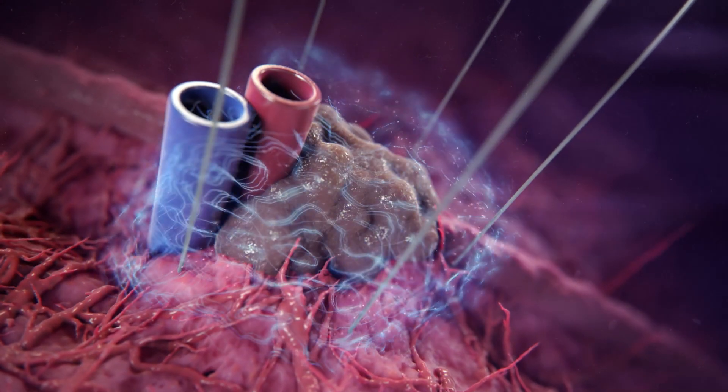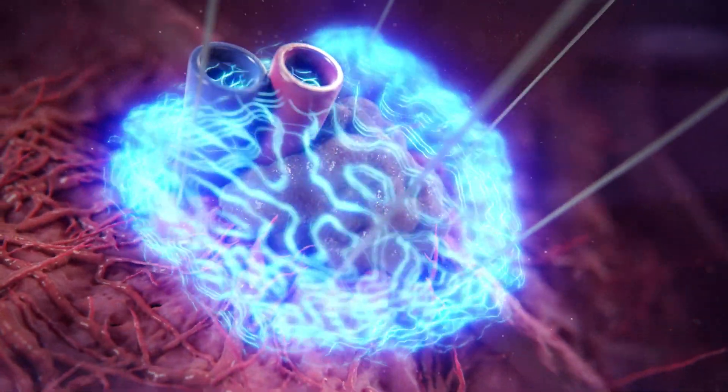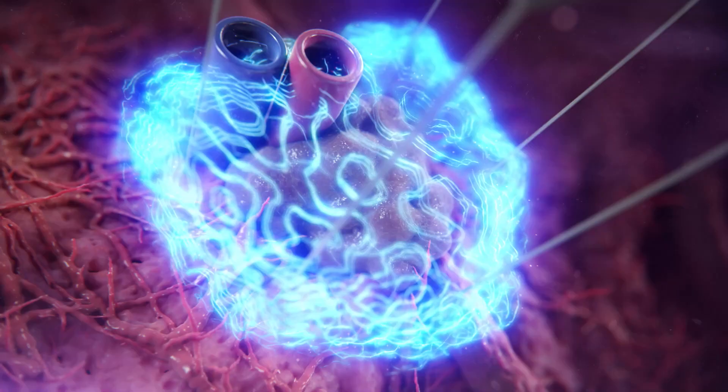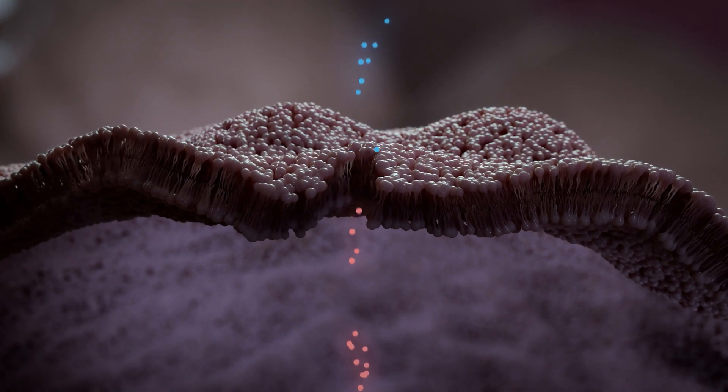High-voltage pulses are delivered between the electrodes and can be confidently delivered in all segments of an organ to create irreversible nanopores within the cell membrane.